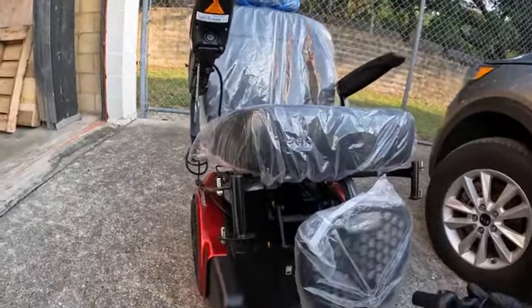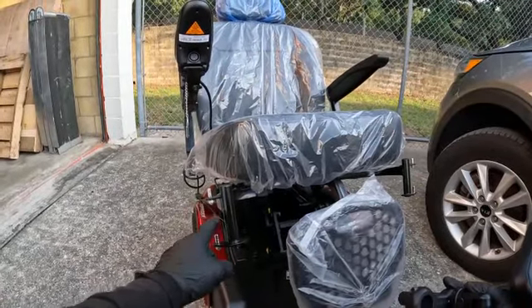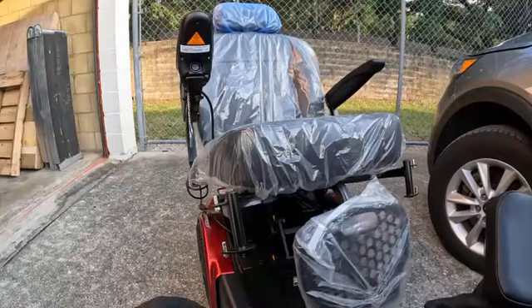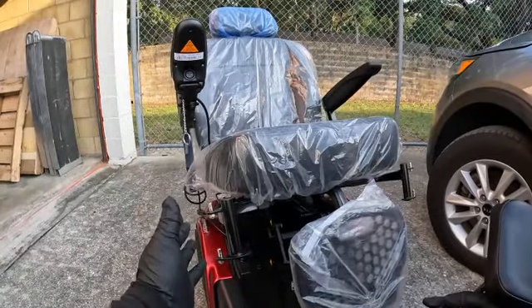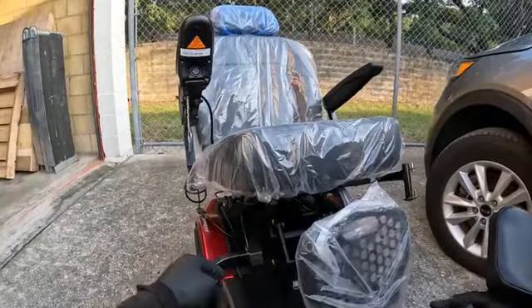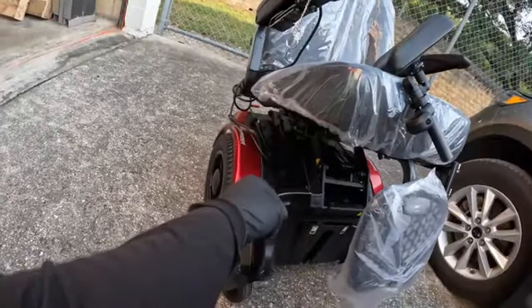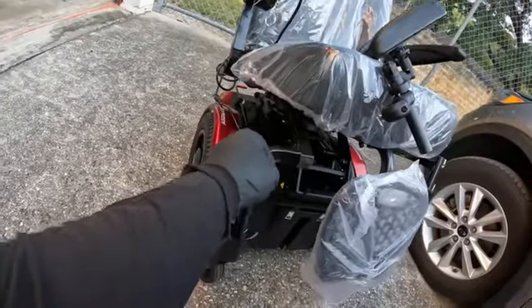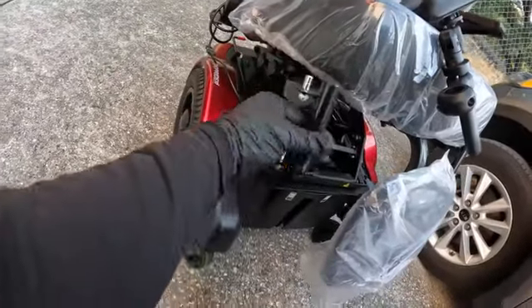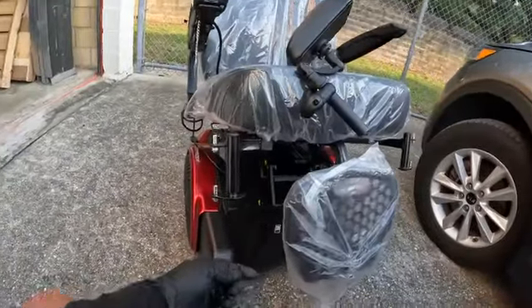On this Shoprider, this right here is going to be your mounting bracket. Typically these are your ELRs that you hook up to. I believe they're right and left and I don't think they're interchangeable — if you mix them up it's going to be too close. Right underneath here is where that mounting bracket for the ELR is. You do have adjustment there as well — you could bring it all the way in or all the way out.